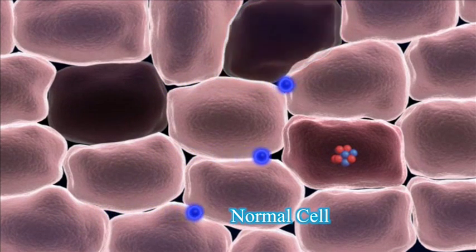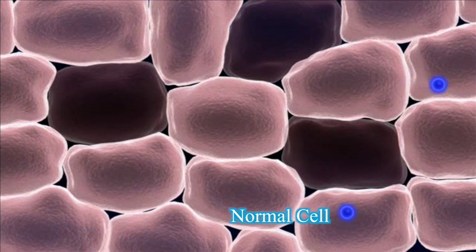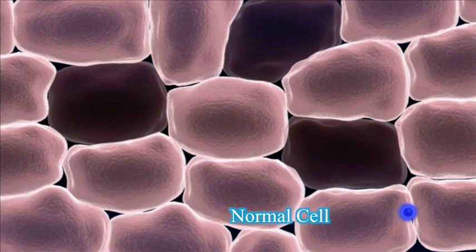Different from other radiation therapies, BNCT will destroy only cancer cells without damaging any normal cells in the vicinity.